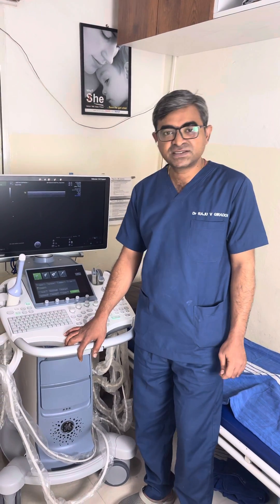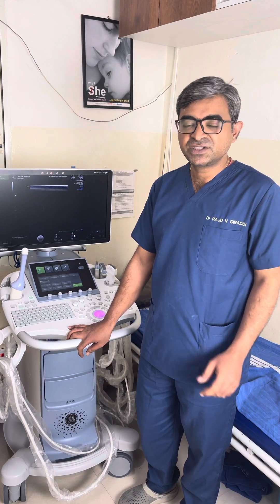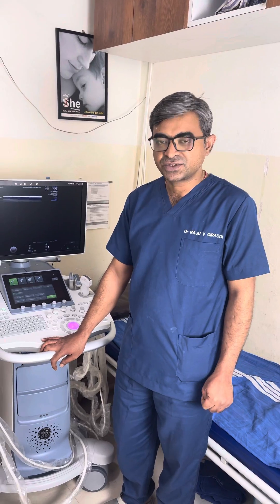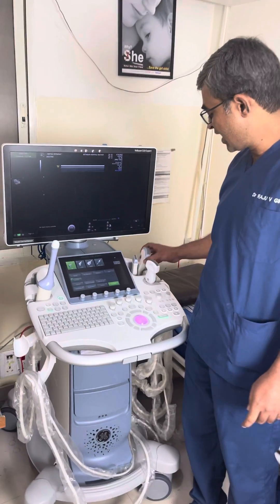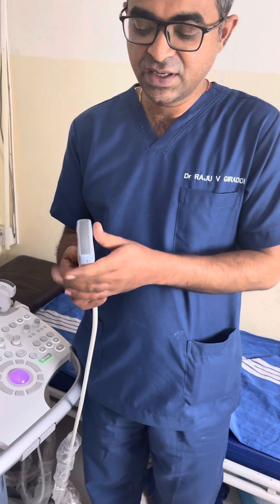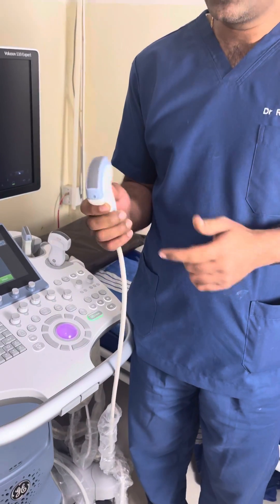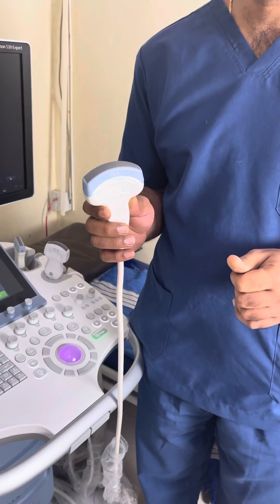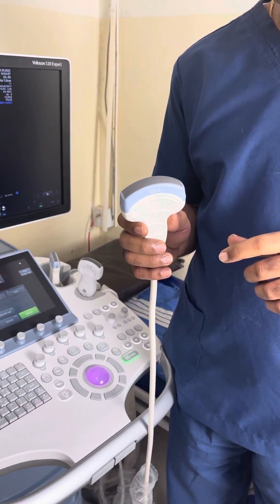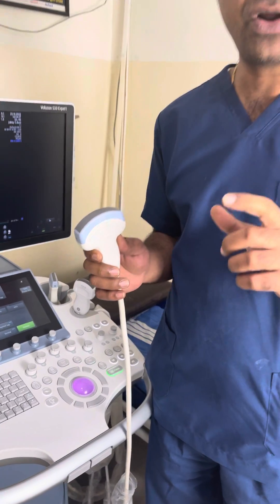We have various different types of probes, which I will try to discuss, that are very important for us in our daily obstetrics and gynecological ultrasounds. First, we have these convex ultrasound probes. The conventional ones range between five to seven or eight megahertz. These convex ultrasound probes try to give imaging which is in depth.